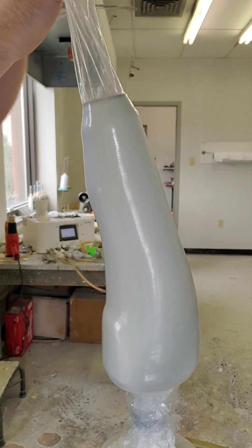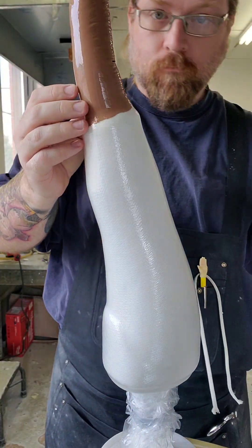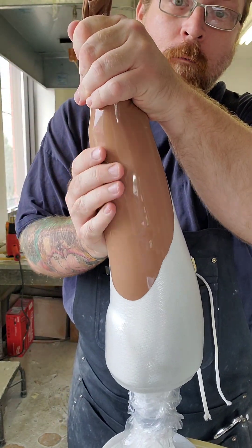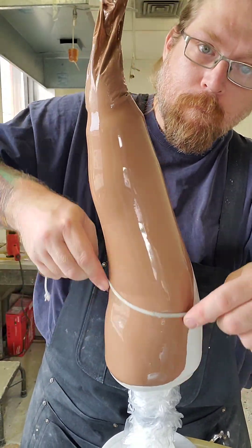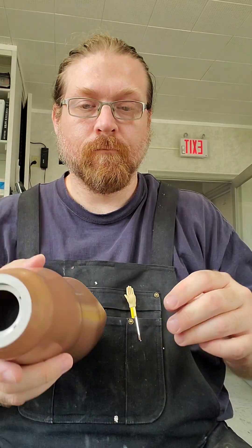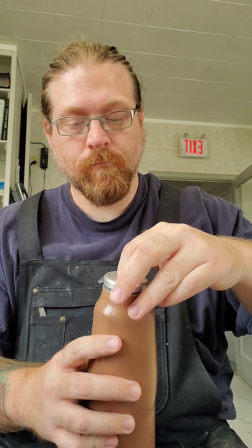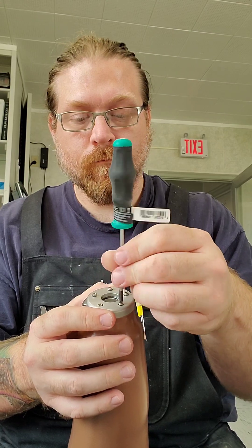One more layer of flexor stretch nylon over the outside and then it's ready for resin. I'll pull the PVA bag over, apply the vacuum, and start wicking the resin down through. After the resin sets and the socket is ground up and finished, I'll finish the plastic liner — polyethylene — and it'll seat into each other. Next is to reattach the wrist unit, making sure everything's in the correct position with the release on the medial side. The five little screws will get torqued down to spec and Loctited into place.